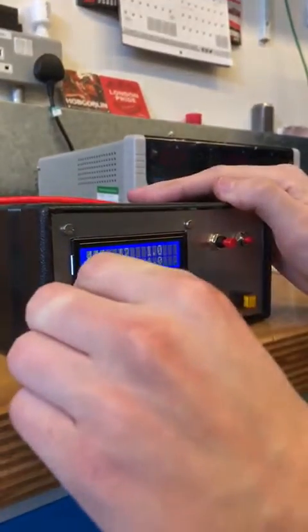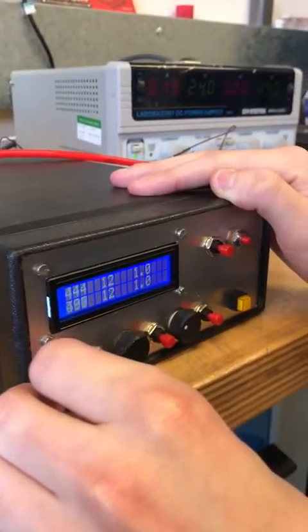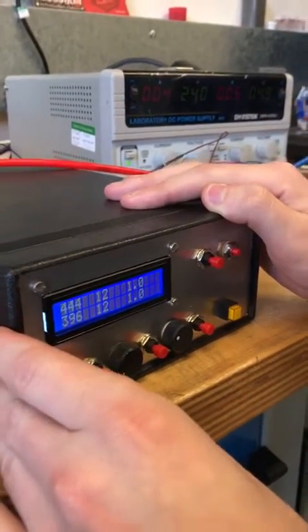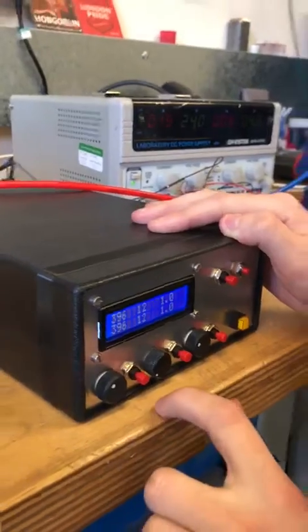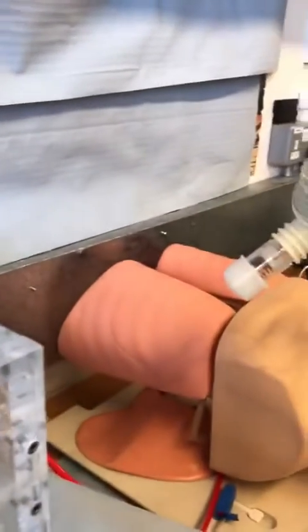To set a new value — in this case I'm going to decrease the tidal volume from 450-ish to around 400 — we push the button to set it, and that is reflected here. As we can see now, the bag is compressed less, and the lungs inflate less also.